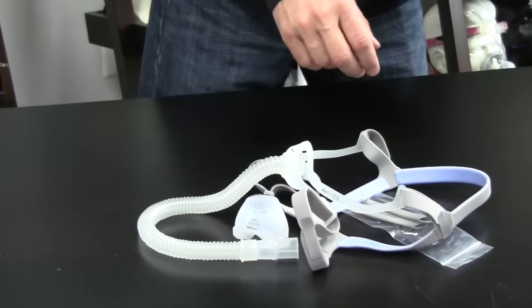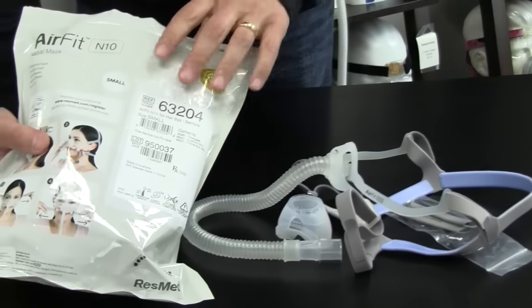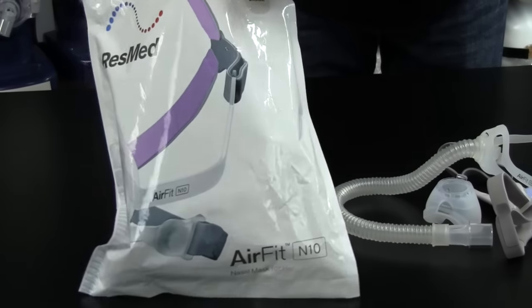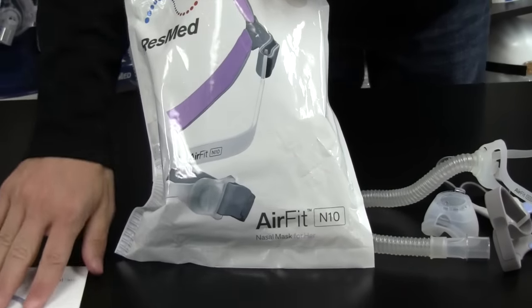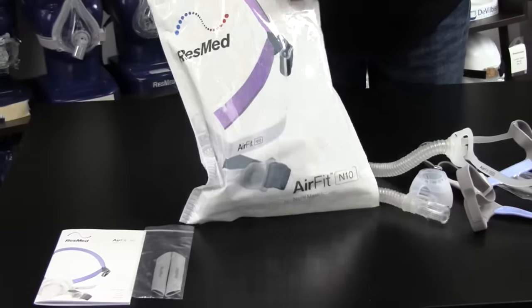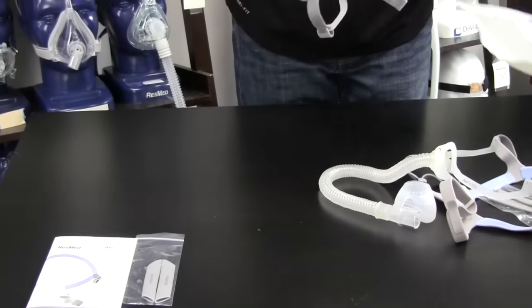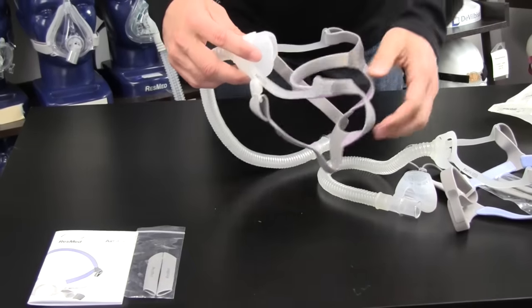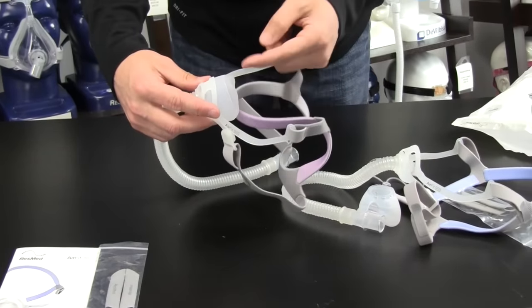There's also an AirFit for women. Same idea, it's just a pink color. You get the instructions with it. There's the headgear straps. This is the version for her. Different color headgear, smaller cushion.